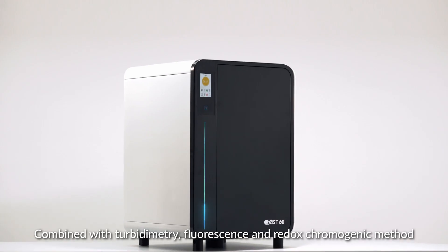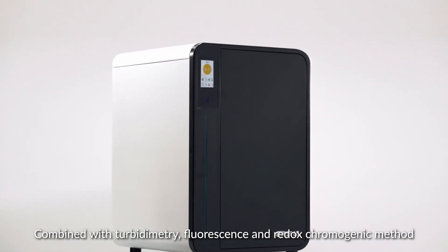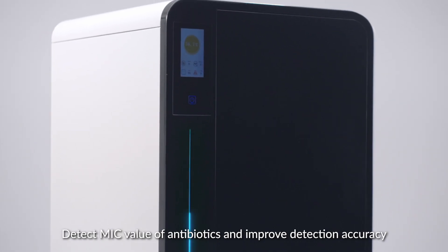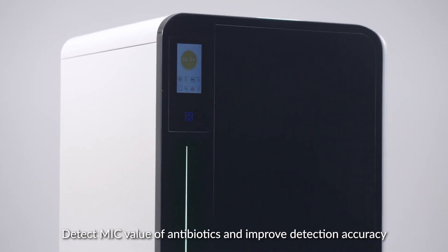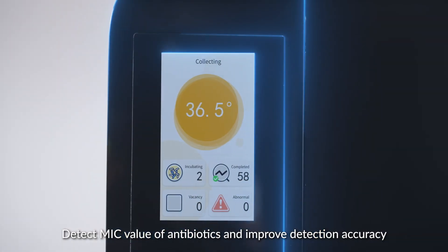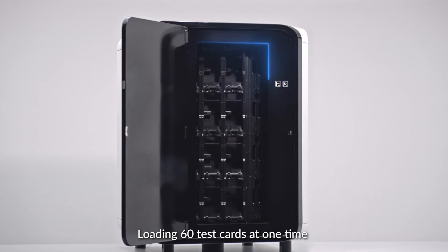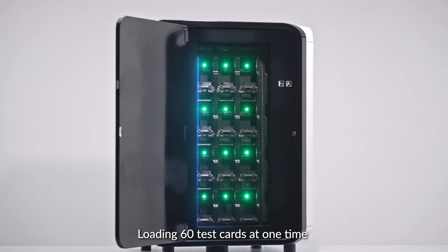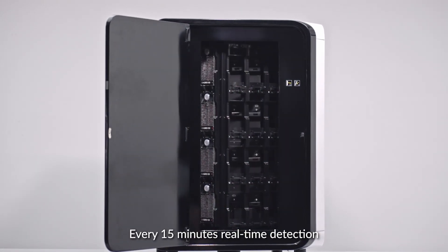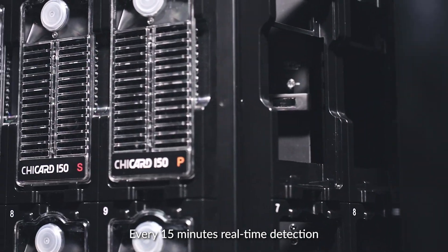Combined with turbidimetry, fluorescence, and redox chromogenic methods to detect the MIC value of antibiotics and improve detection accuracy, it can load 60 test cards at one time, providing real-time detection every 15 minutes.